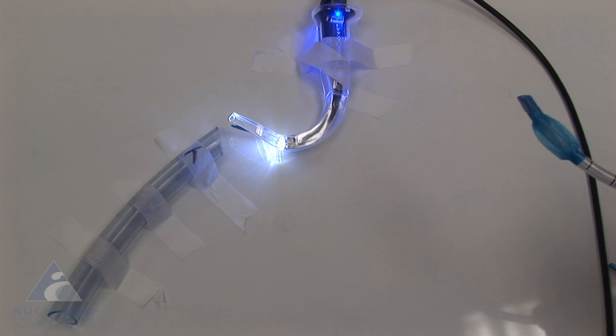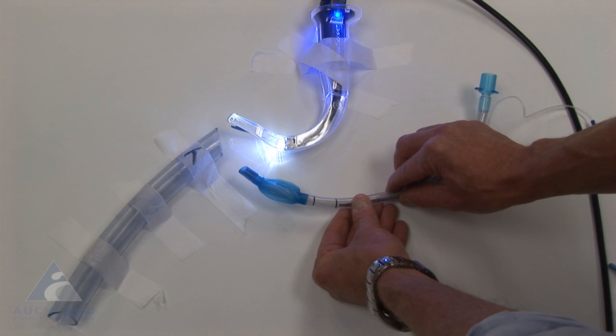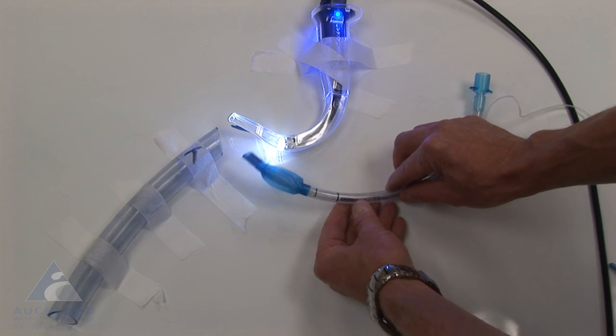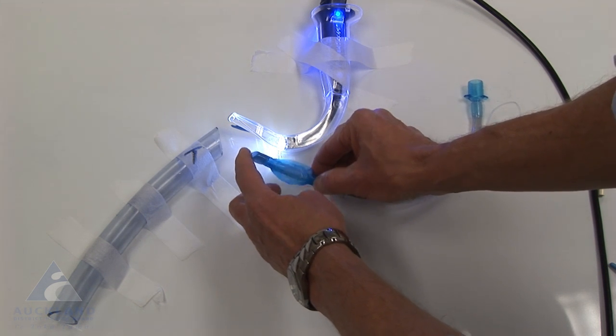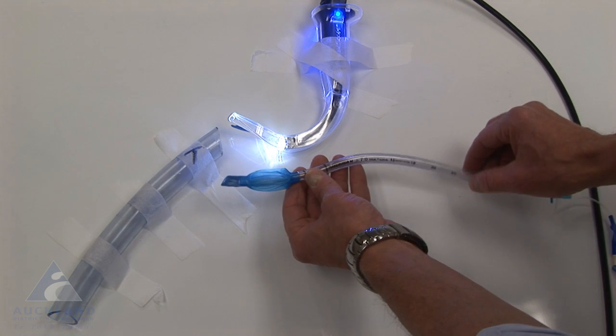And the first thing is to have a look at the kind of tube you would use for a very difficult intubation with an anterior view of the larynx with a video laryngoscope. This particular tube is a pretty standard reinforced tube, and you'll notice that the tip is very, very floppy compared to a standard endotracheal tube. The next thing is that the shaft is very floppy.